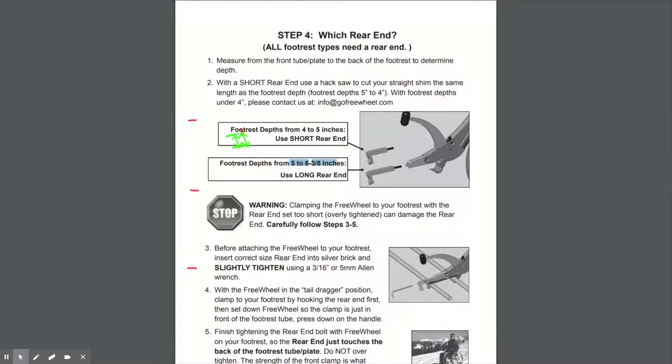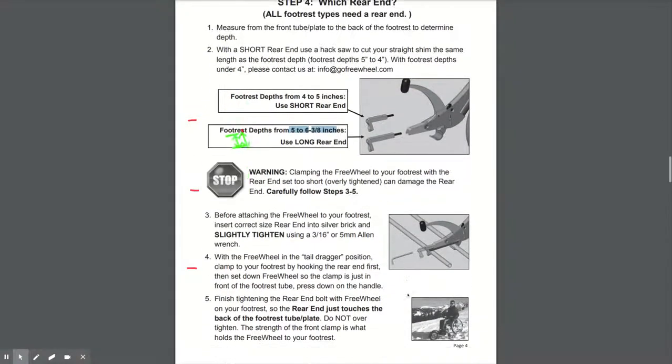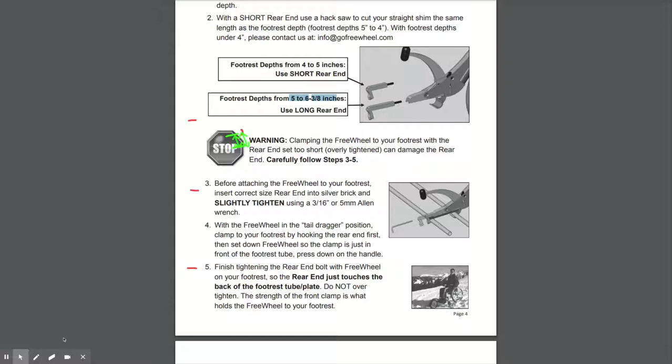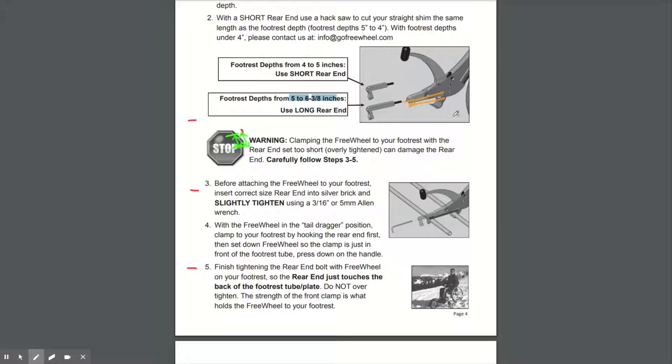You then slide it in the back of the freewheel, and be careful when you are sliding it in. You'll see a groove either side. So here, either side is a groove that goes all the way down, which takes this thin, medium or thick shim. So be careful when you're sliding it into the freewheel because it can maybe catch if you don't get it in completely square.